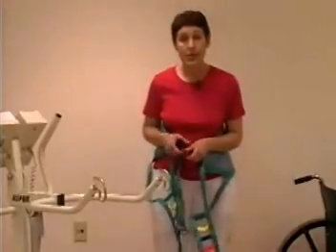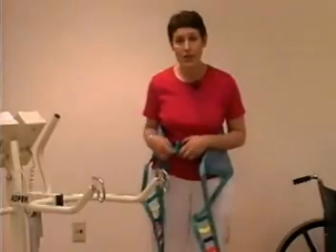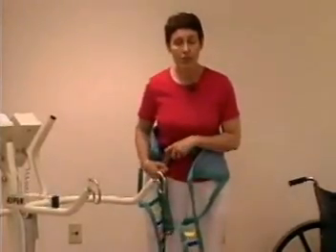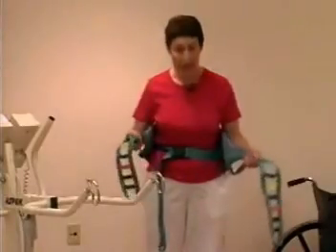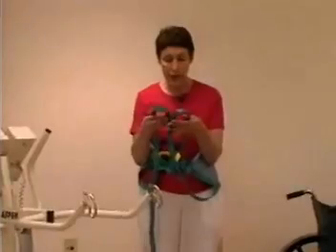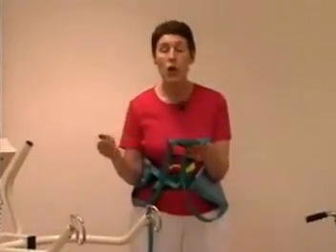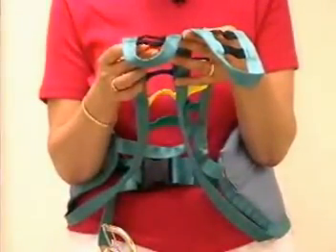When you secure the safety strap, you don't have to make it too tight, but you should make it secure so that it's not going to slip too much. At the ends of the slings are some color-coded loops. The purpose of the loops is to allow you to bring the patient close to the lift or keep the patient further away from the lift, depending on the patient's size as you're using it. The sling should be washed when it becomes visibly soiled.